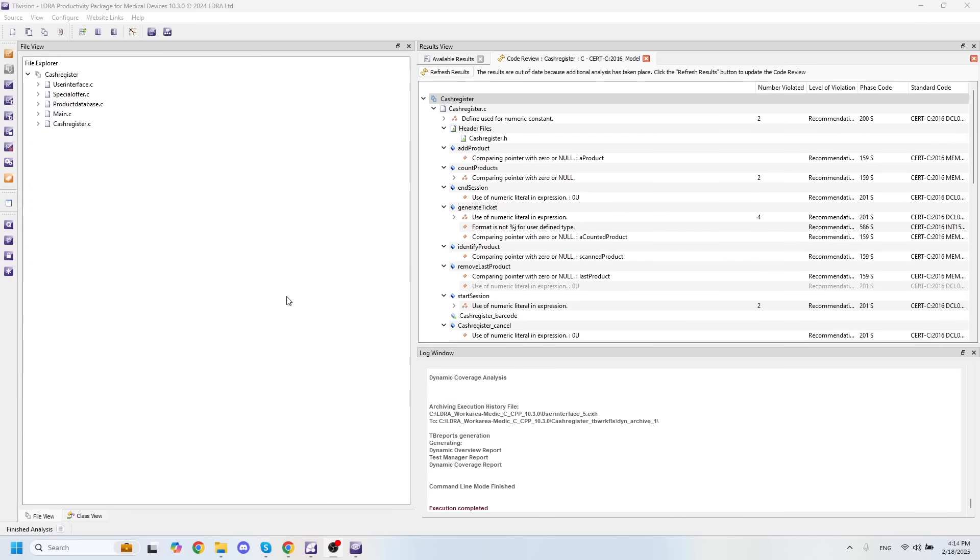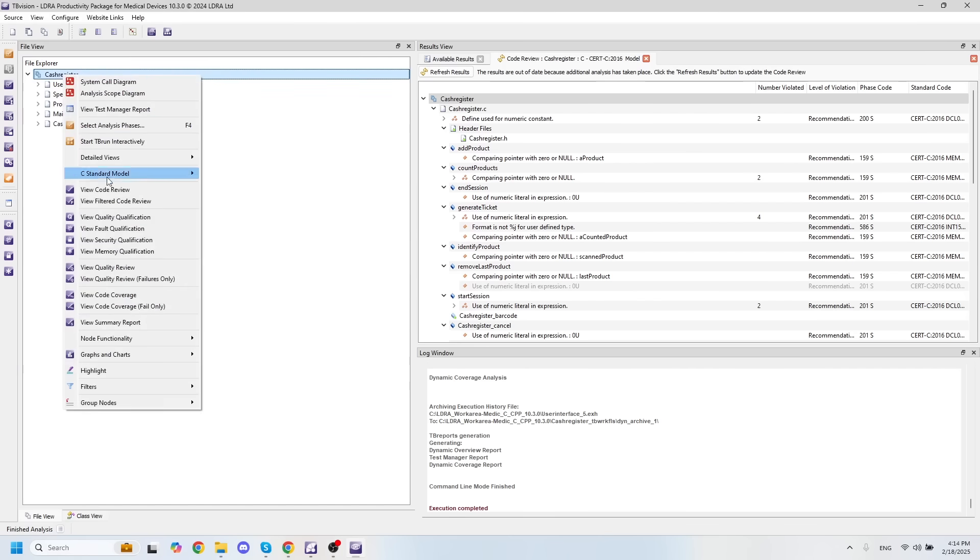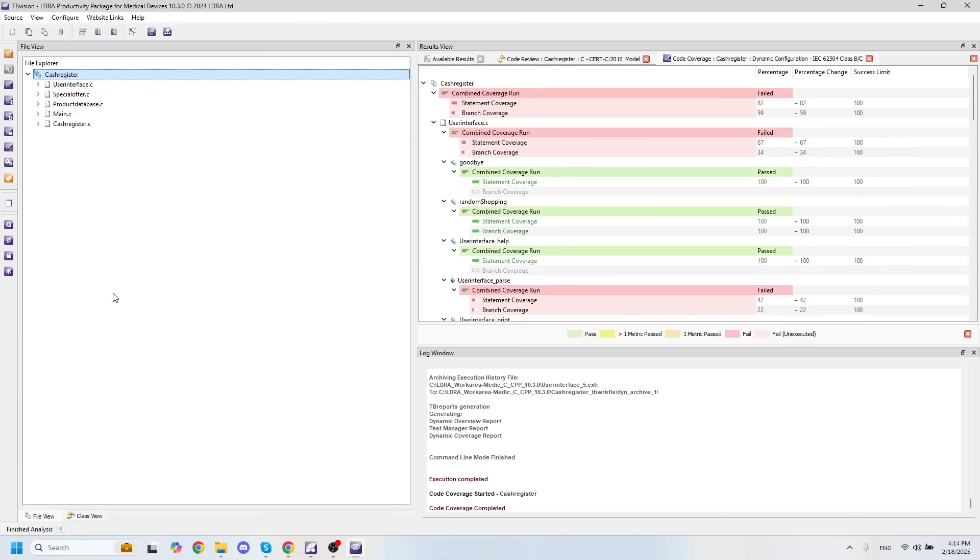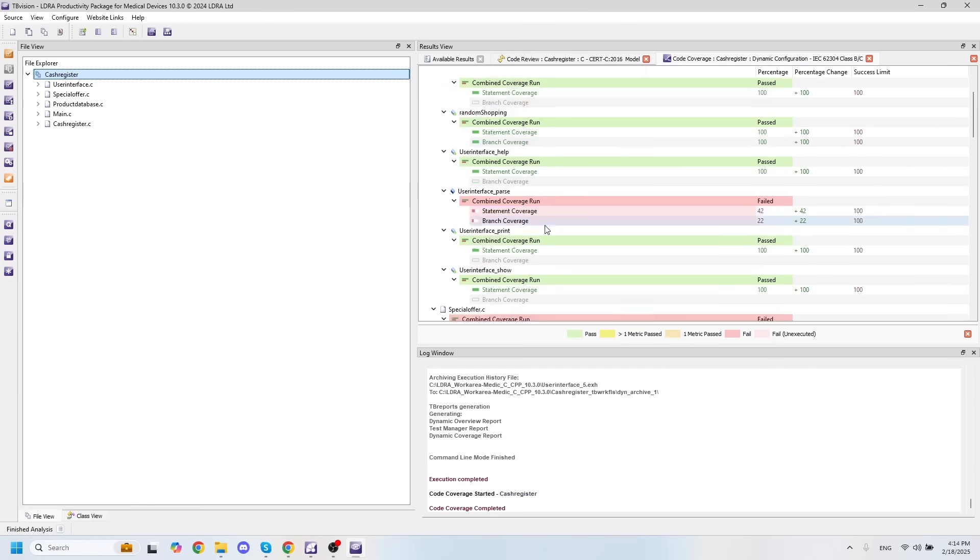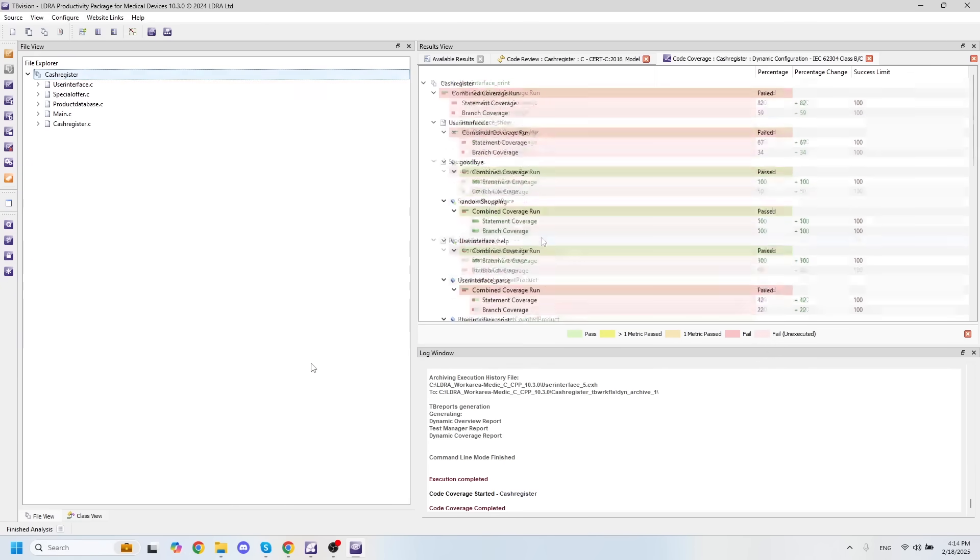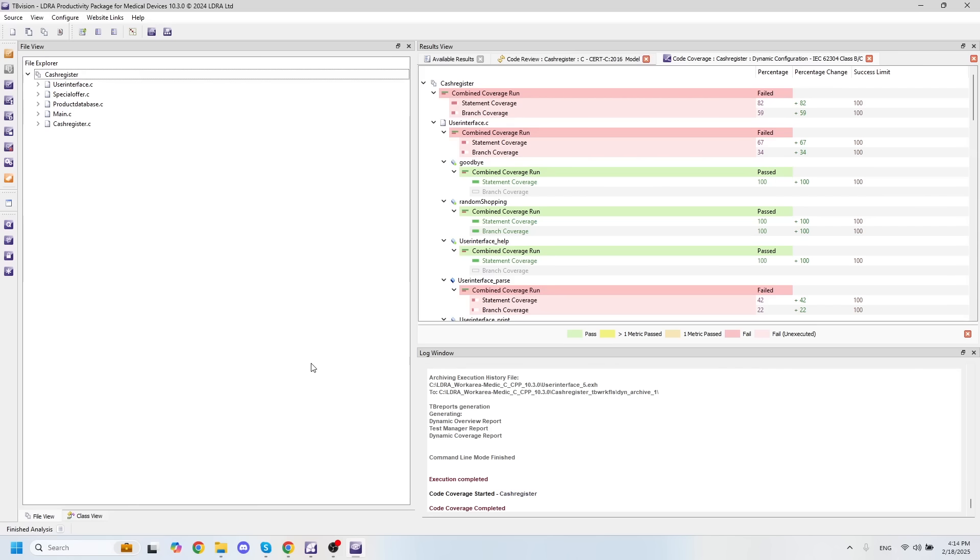And so now that the execution has completed, I can right click on my set and view our code coverage to see all the different statement and branch decision coverages. So now that I have some code coverage here, one of the next things that I'll want to do is maybe increase this code coverage by doing some unit tests.